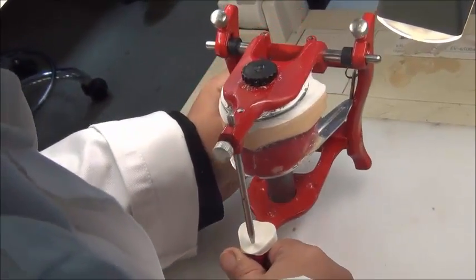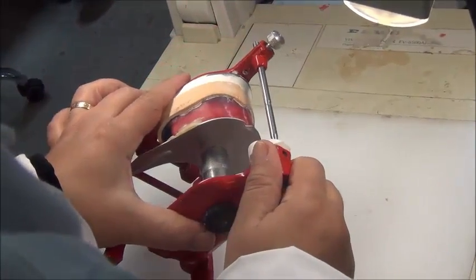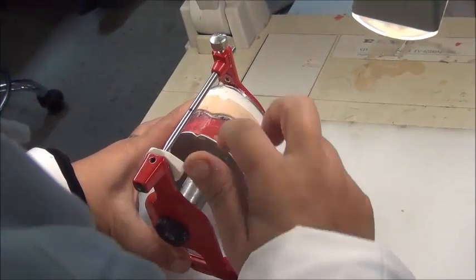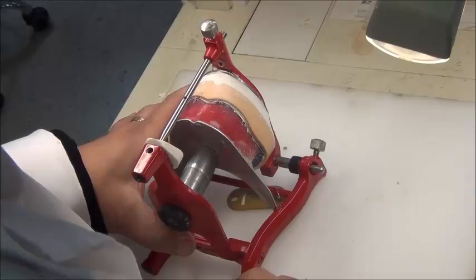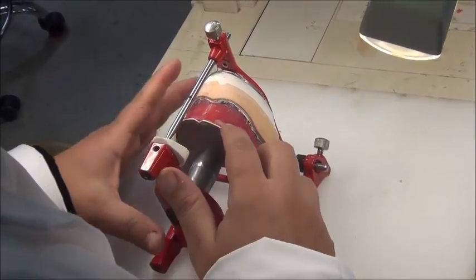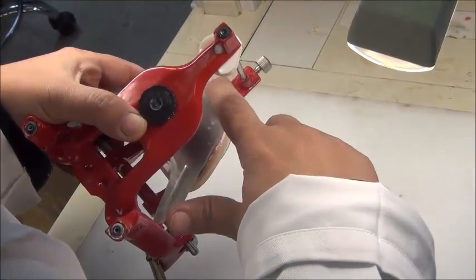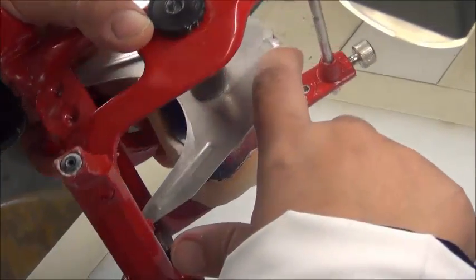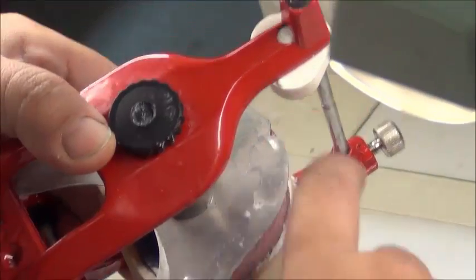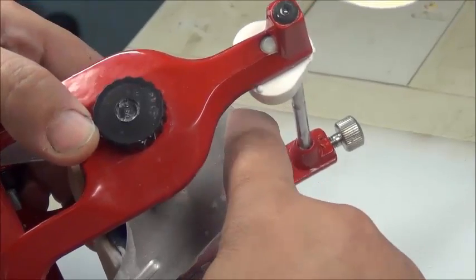Now, how we're going to judge the mounting of the upper. If we look at the upper, the first thing we need to check is the midline. I need on each cast to have a clearly drawn midline on the cast and on the wax rim, to make sure that this midline corresponds with the midline reference on the articulator. What do we have as a reference here on the articulator for the midline, anteriorly? Do you see this notch, the V-shape notch on the jig itself? This determines where the midline is. So this is our reference for the midline.